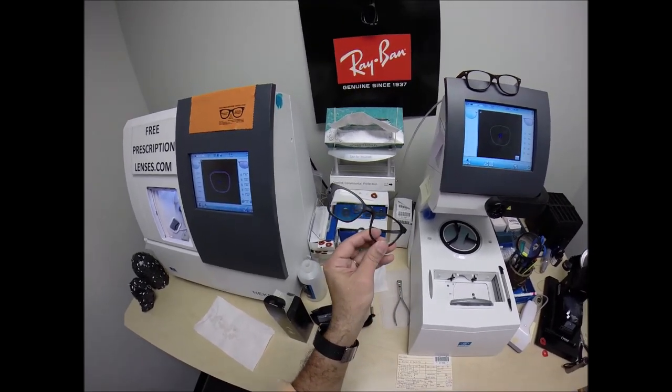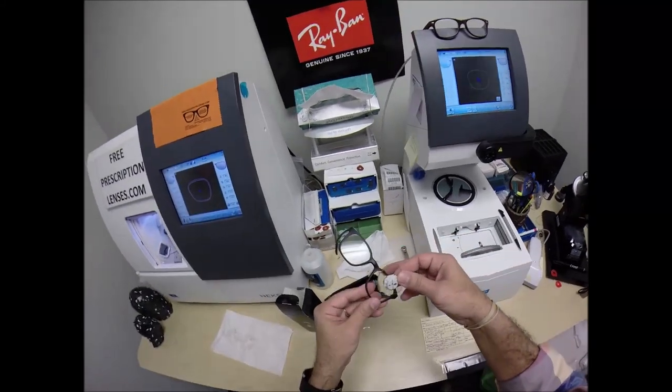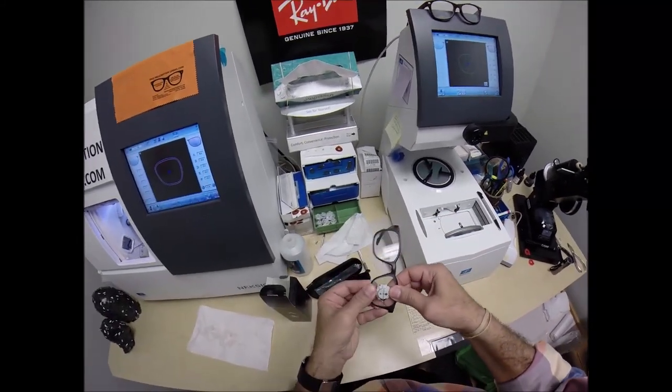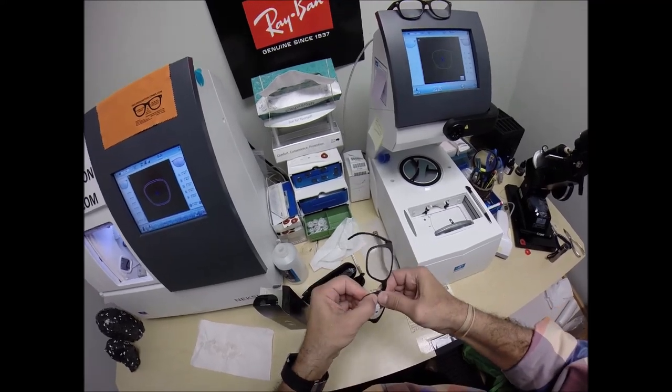And by the way, I love saying this, and I told it right to my dentist. Dentists make us look cheap. Opticians, that is. They charge a whole lot more. So we're going to tuck it in at the outside corner first. And then using my thumbs, I press down at the nose. And actually, it did not want to go in. So a little bit stronger lens.